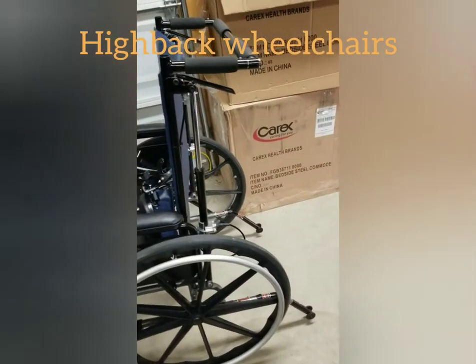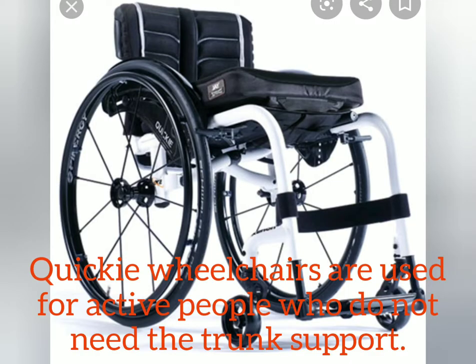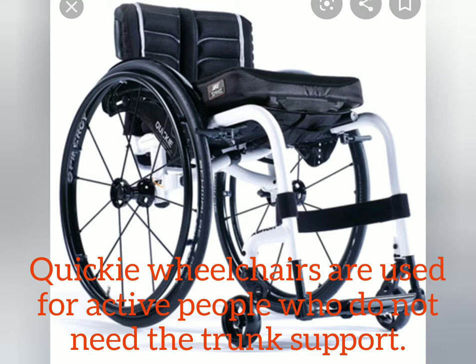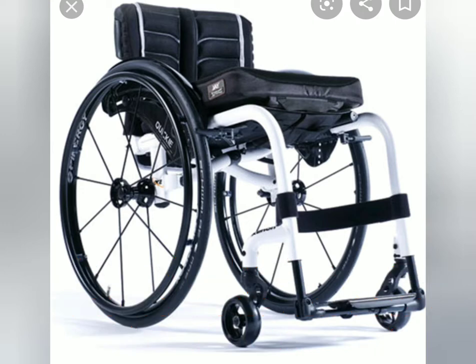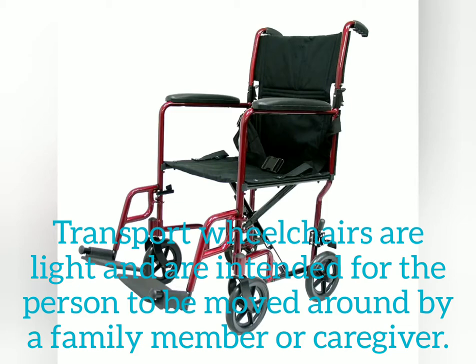This is a high-back wheelchair. As you can see, it has a high support, and with these levers here it allows the wheelchair to recline back. There are various other types of wheelchairs as well — I've added the quickie and the transport chair here for you to look at. Just be aware that the parts and the function of the parts we've covered are pretty much the same regardless of the type of wheelchair.